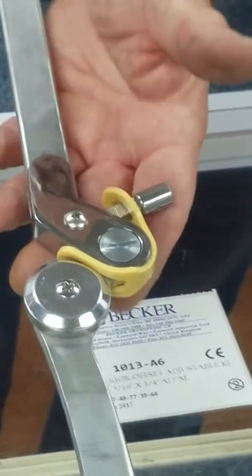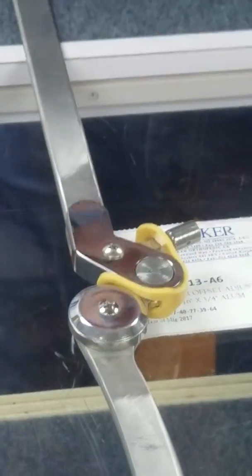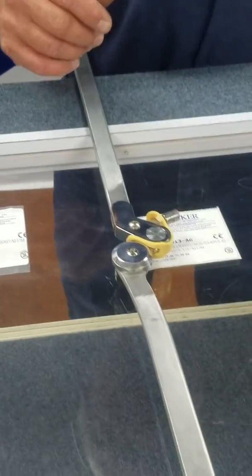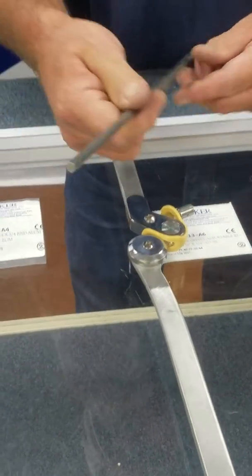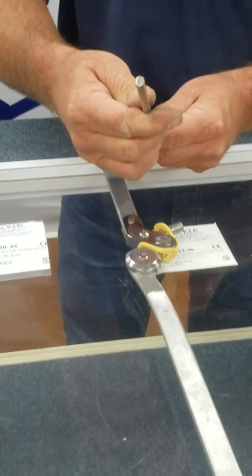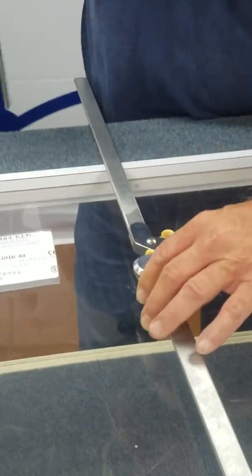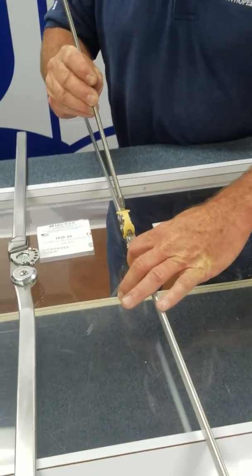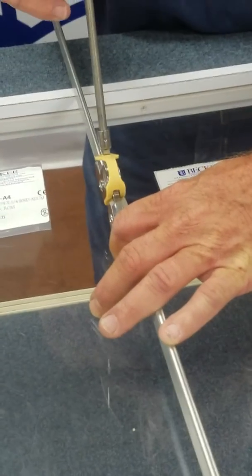There was one more thing I wanted to show you. Some folks are calling and asking, 'How do we install the rod?' Each of these joints comes with a quarter-inch stainless steel rod that can be inserted and contoured around the popliteal area.